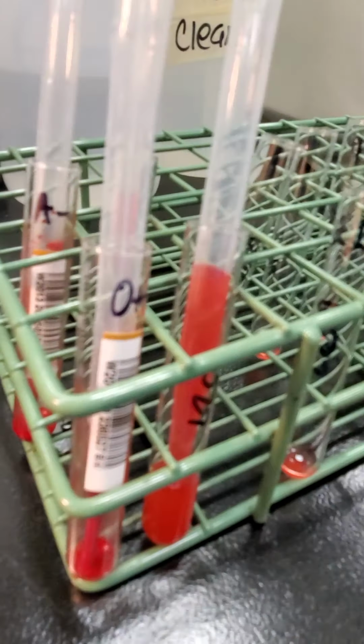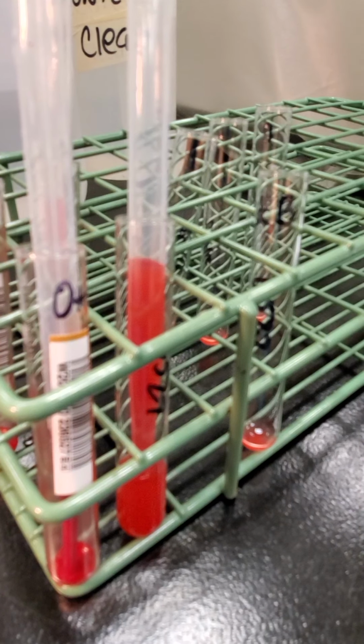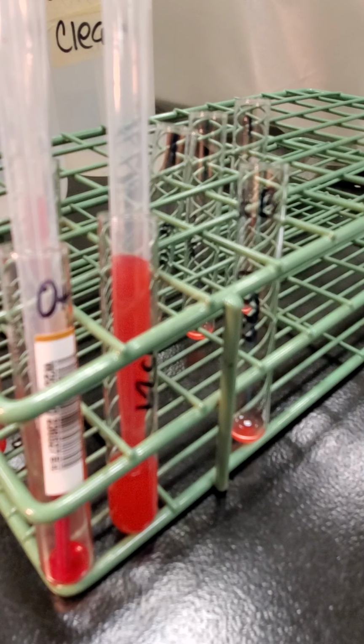Okay, so those are the only two unit types that I'm going to do. I want you guys to go ahead and make some decisions as far as when you're using A,B, when you're using A and B separately, and when you're using that D tube. So I've listed the rest of the unit types, or the ABO types, on the sheet. So go ahead and fill out the reactions that you anticipate based on the type, and then fill in that interpretation as if it did confirm the unit labeling.